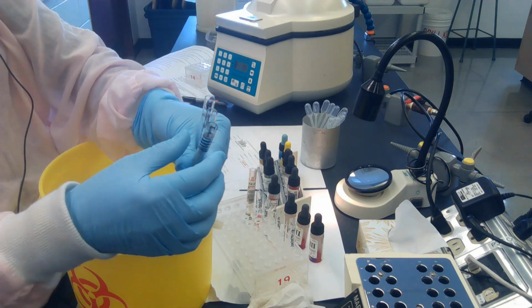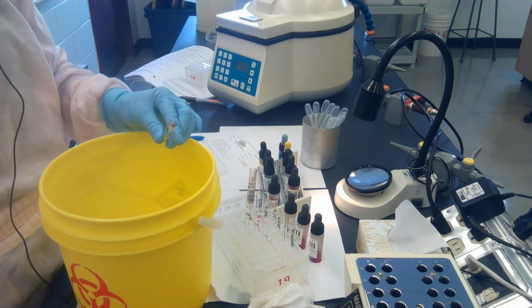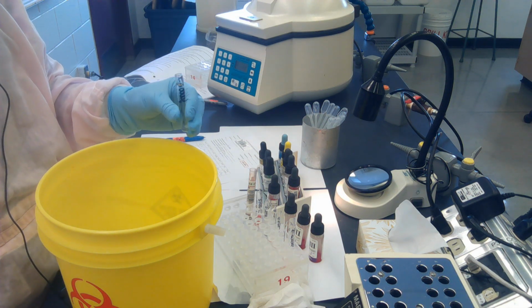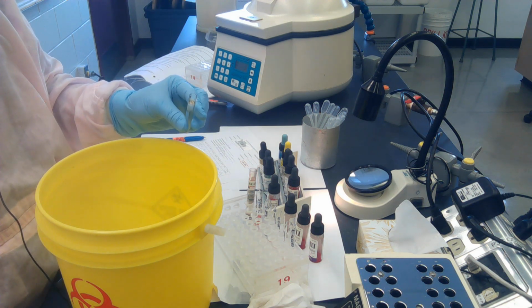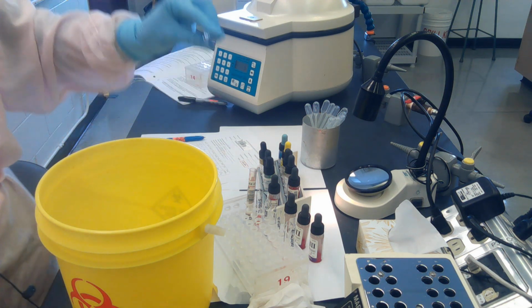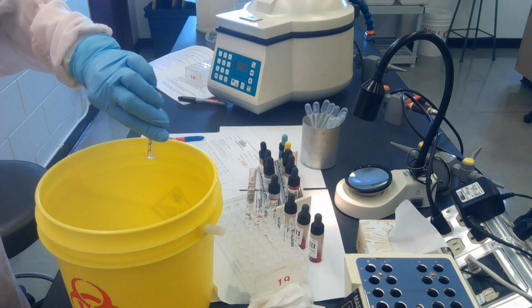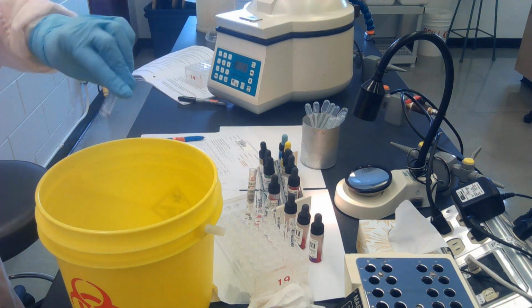And I'm going to dump. So I'm going to dump one tube at a time to start because I'm new at this. So we're going to do a forceful dump. Not a very gentle dump like we did to make a 5%, but forceful. So the tube is going to end up right upside down. So down, you can see some liquid here. I want to get rid of that. So up gently, down, and back up.